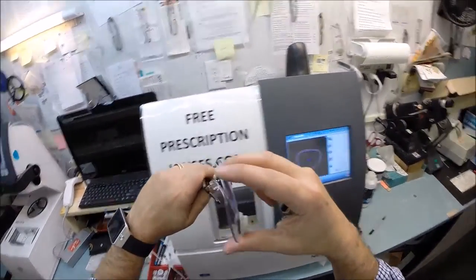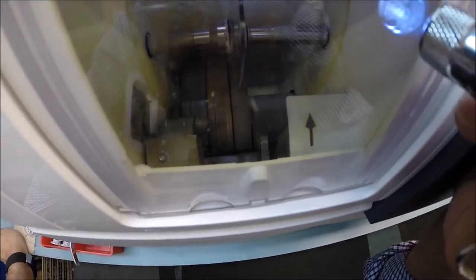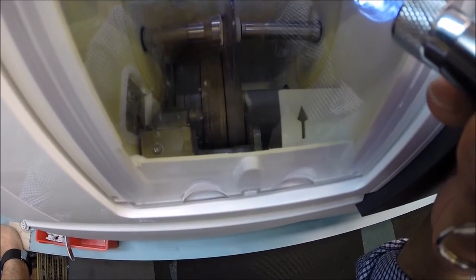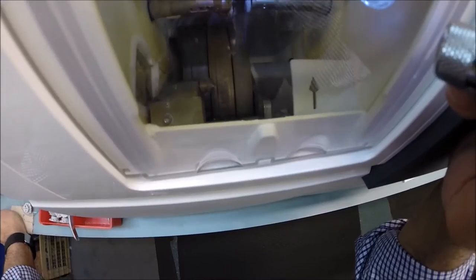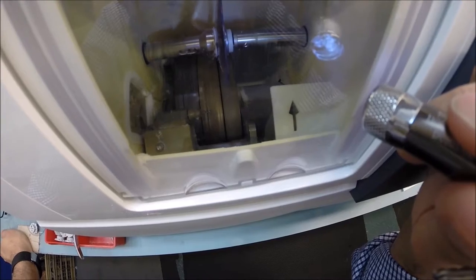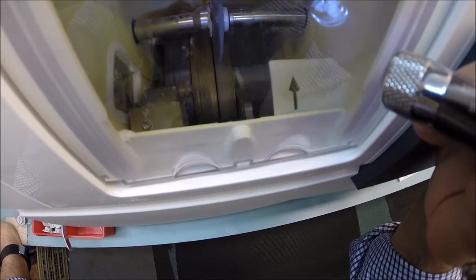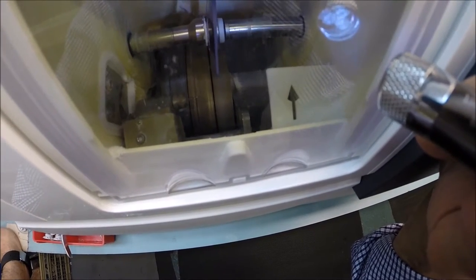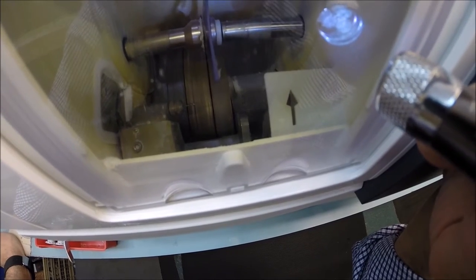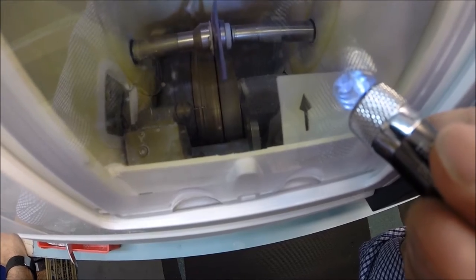Two white calipers are gonna trace the shape of the lens to make sure it's large enough to fit into the frame. It's gonna do it twice, measuring the thickness of the lens at every point to know exactly where to place the bevel. Now if you notice there is water running in the background - that's just to collect optical sawdust. Polycarbonate cuts dry. Your lens is now being applied to the cutting wheel. You can see the reflection in the background from your bifocal as it spins, that light reflecting back in the water, a little prismatic effect with your lens.